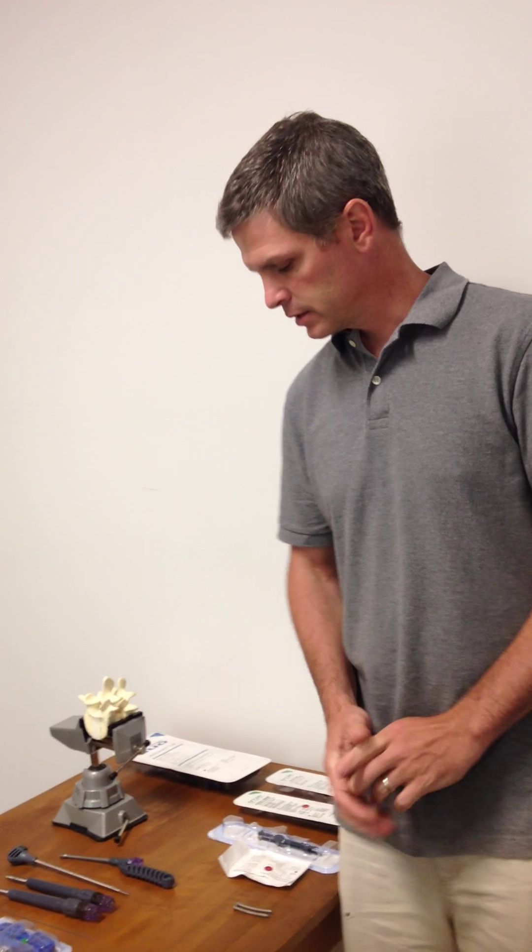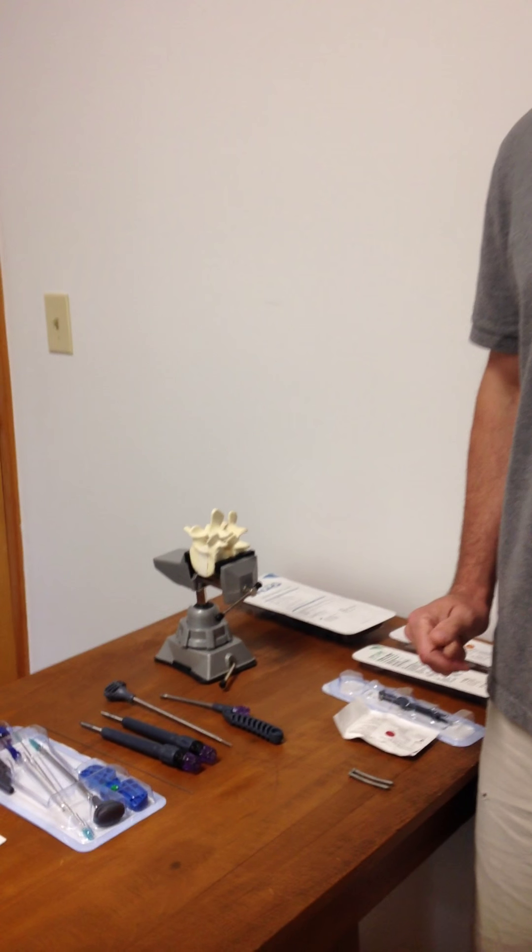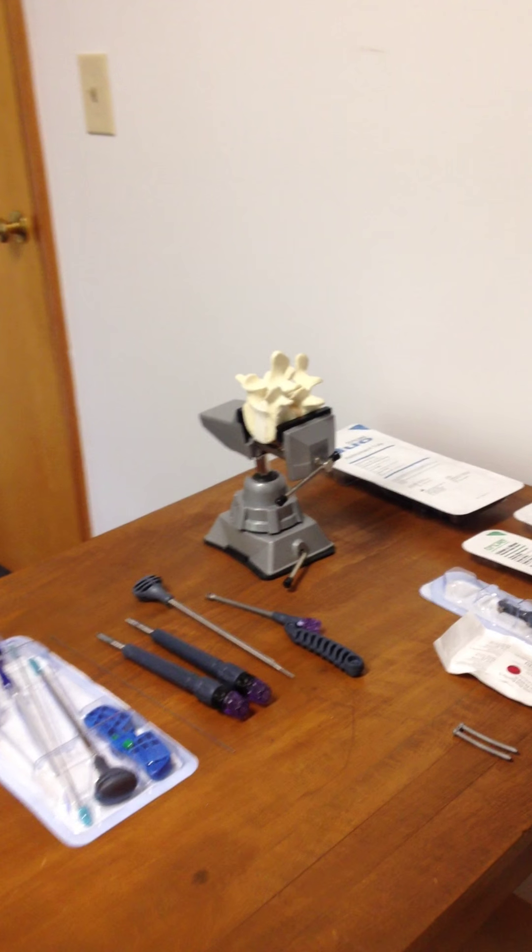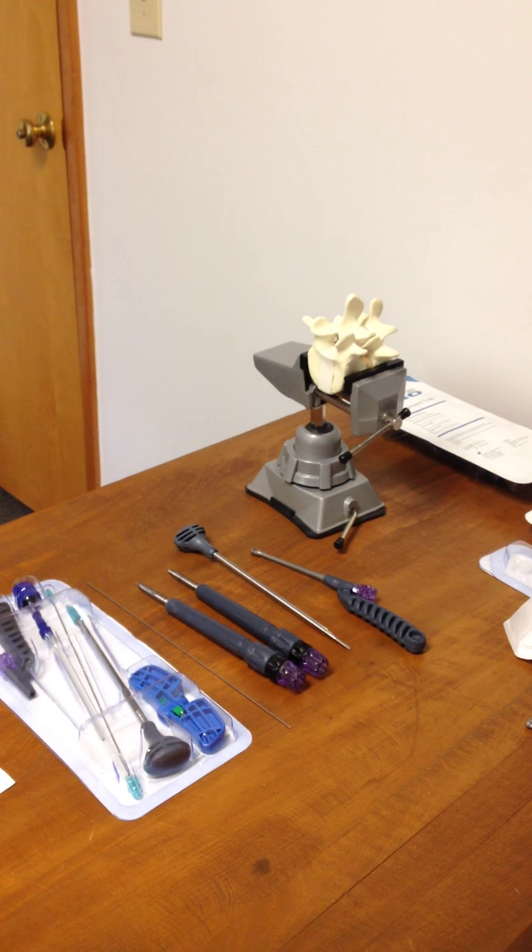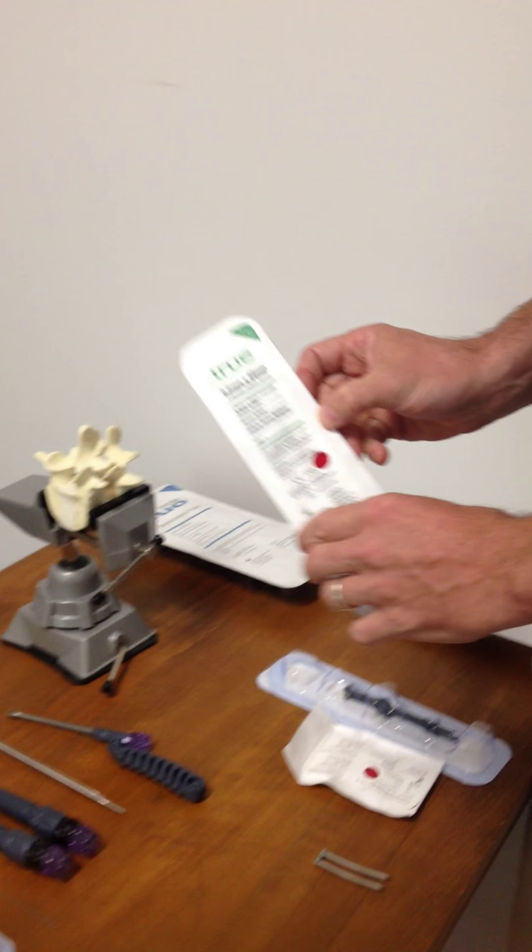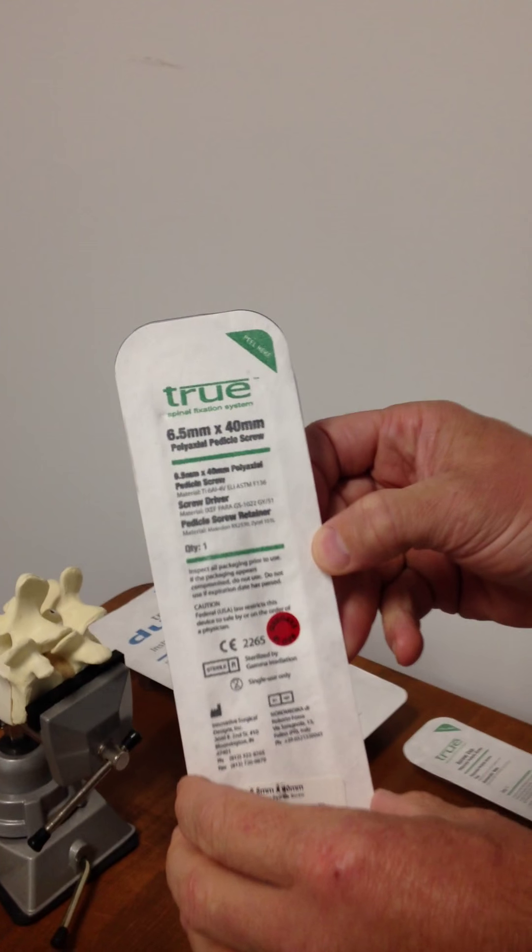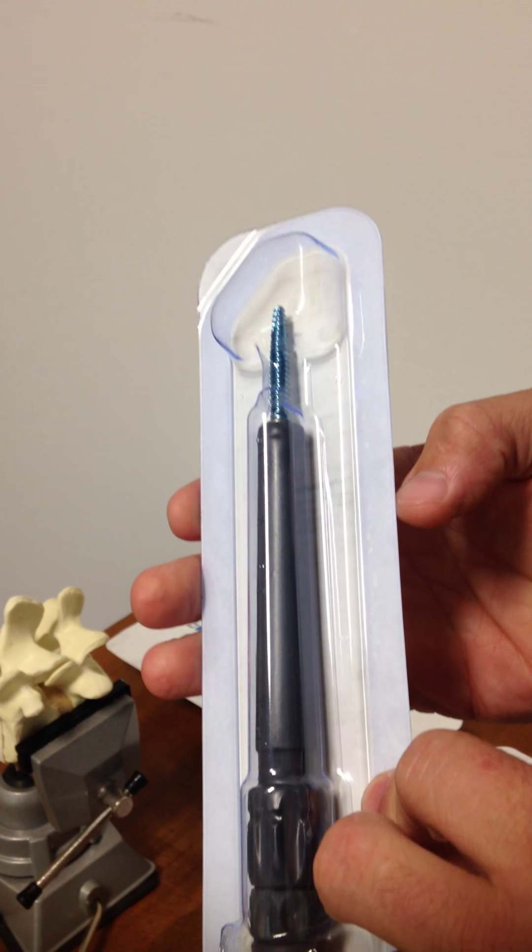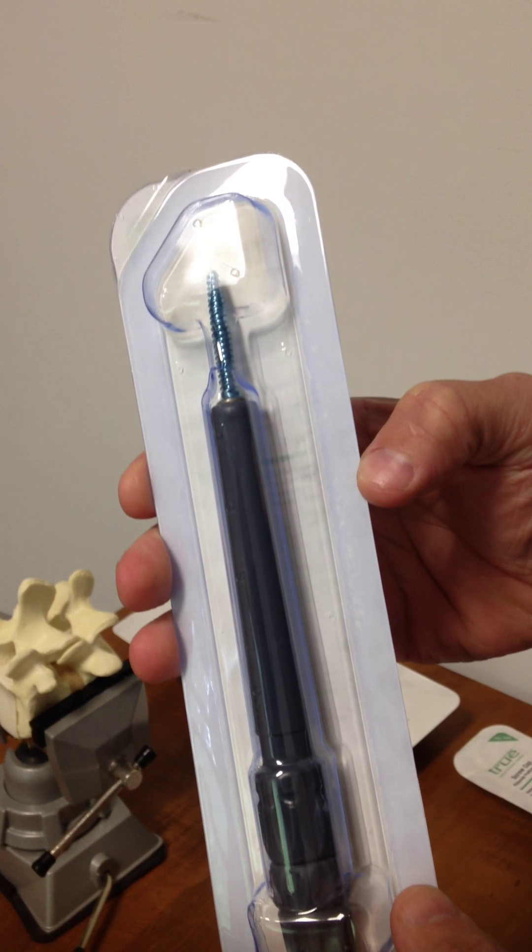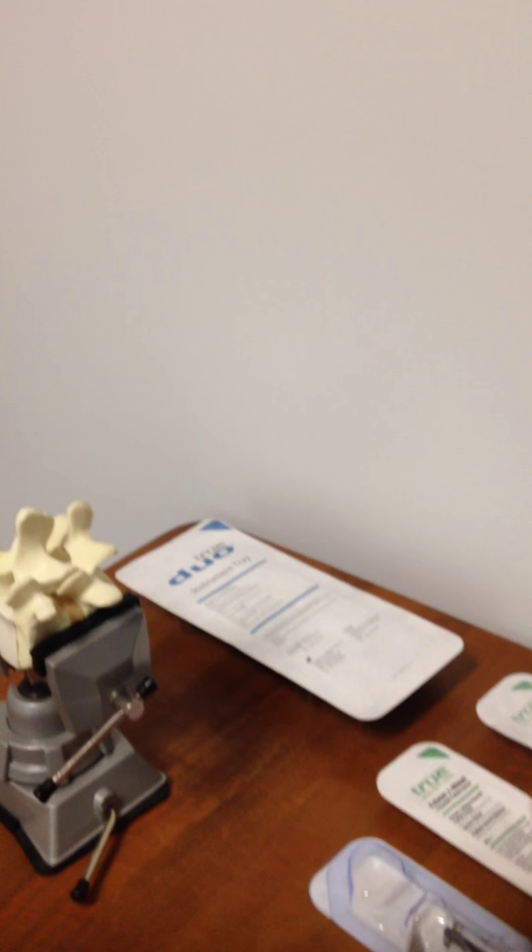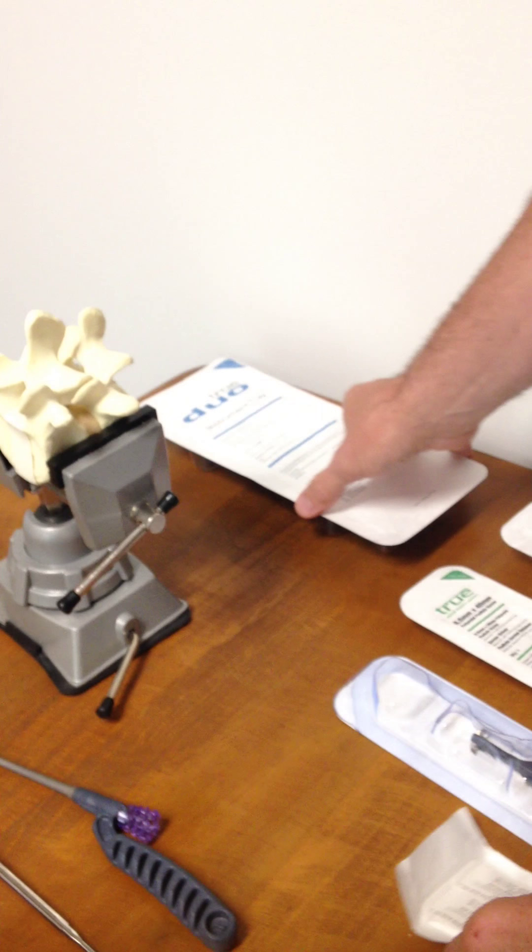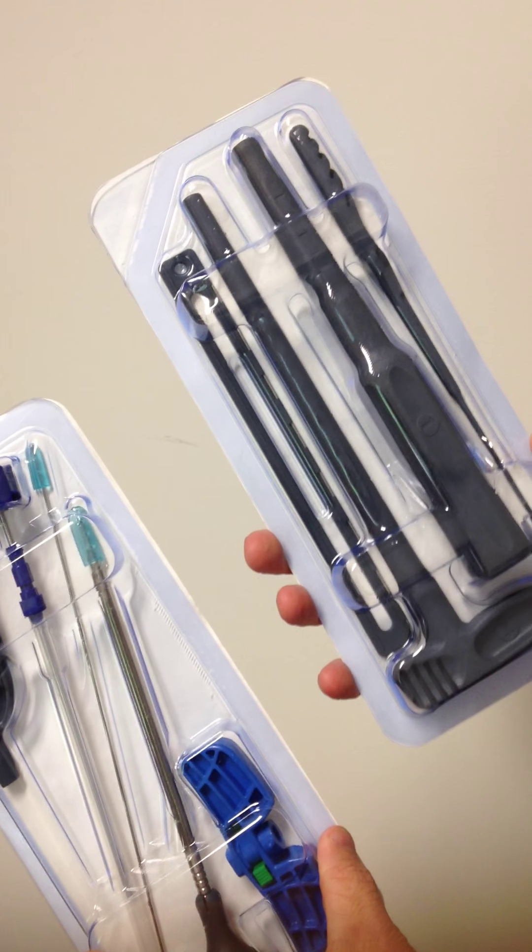With Innovative Surgical Designs, I just want to go through our new MIS minimally invasive spinal fusion kit called True. The kit comes pre-sterilized in disposable packages. This right here is our screw. We have our cap sets, our rod sets, and then there are two instrument sets that come with this. This is our basic set for open procedures.